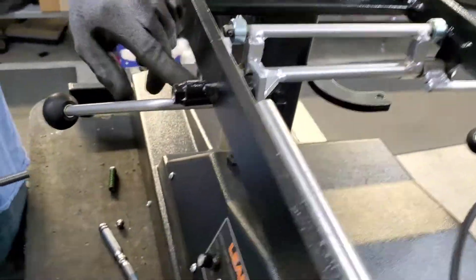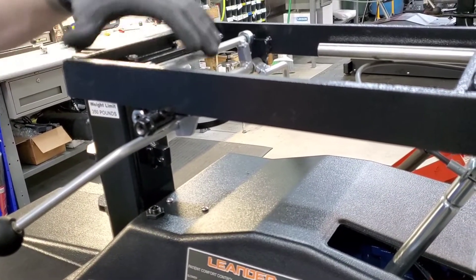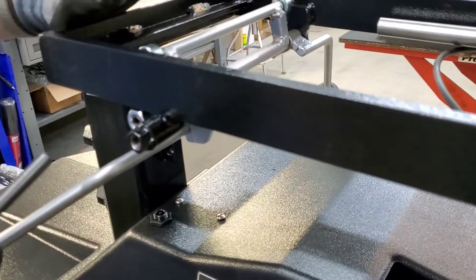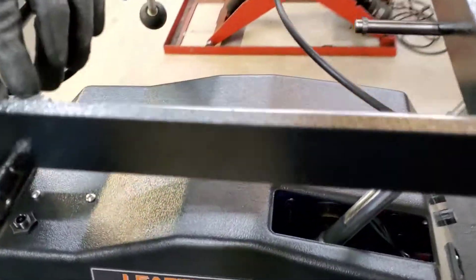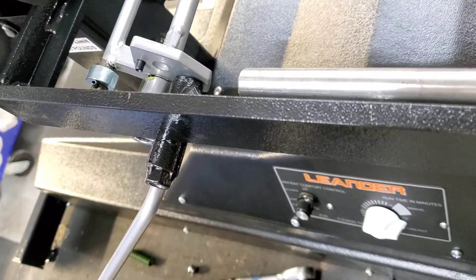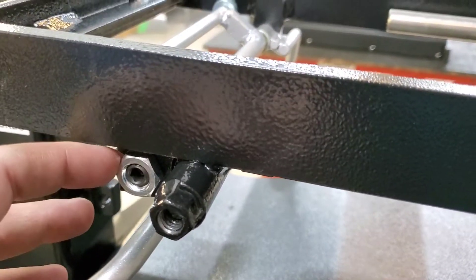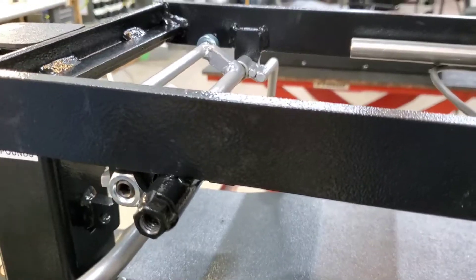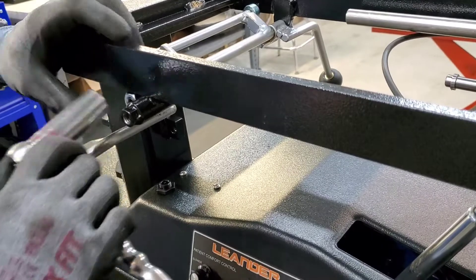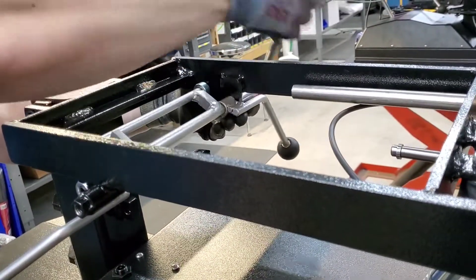You can play with the tension knob — screwing the set screw in further will push the plate away from the tension knob. With the plate about an 1/8th or 1/16th of an inch away from the tube with the ball bearing and spring, that should give you the right amount of tension and pop. Note: don't put the set screws in so far that the nut sticks out further than the set screw, and don't go so far in that it's hollow. Once you've got your tension right, take an 11/16 socket wrench and tighten it up — it shouldn't take too much pressure, just enough so it won't loosen itself.